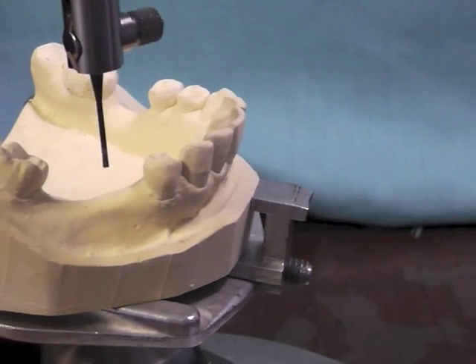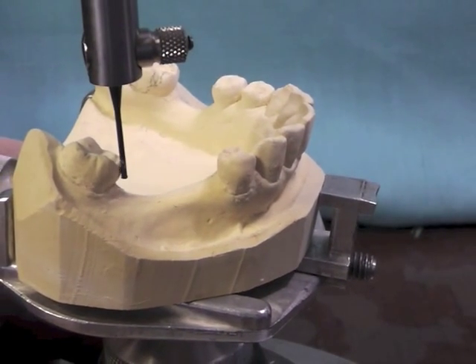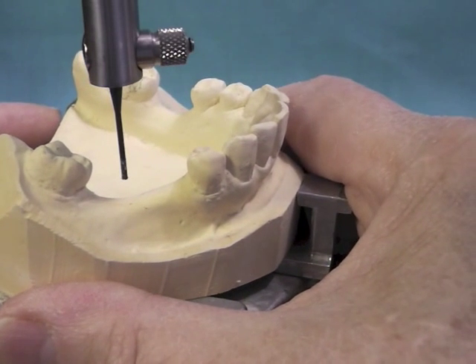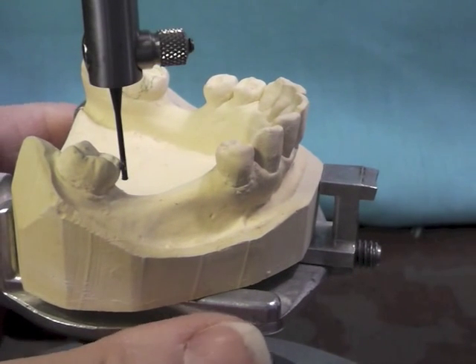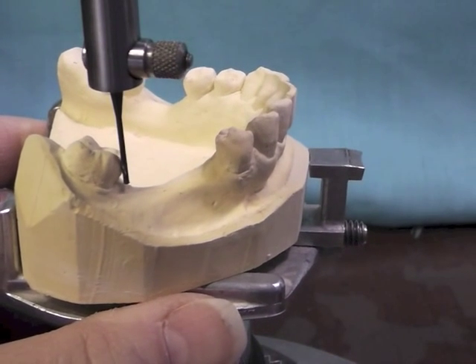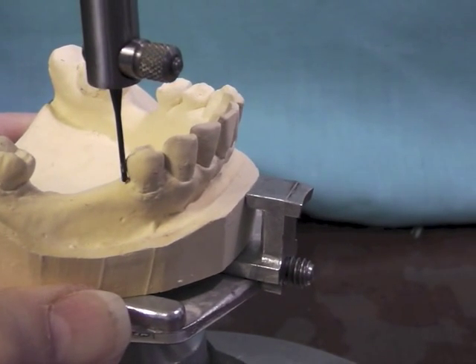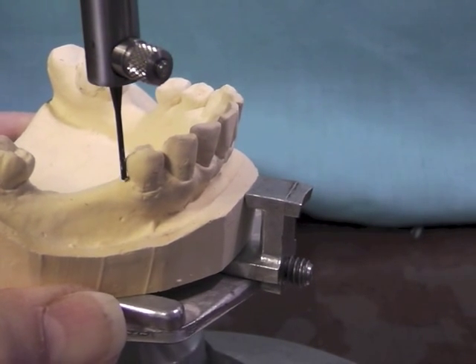So I can improve how much I have to take away. In order to create that guide plane, I have to take more away right now the way it stands. But if I loosen my knob and bring this posteriorly a little bit, I tilt it to the distal — I am making that space of light in there, the undercut, less radical, and I would have to remove less tooth in this area. And I would still come up with a relatively good guide plane in that area.